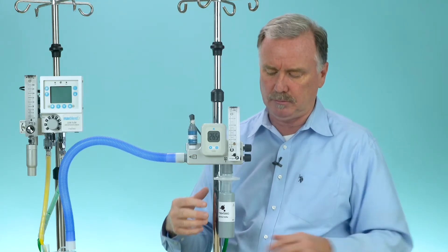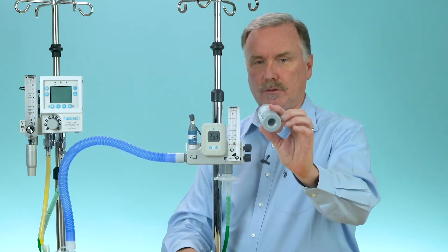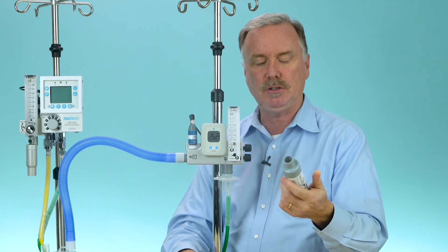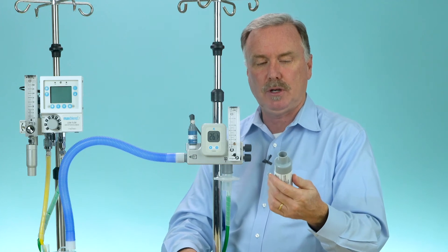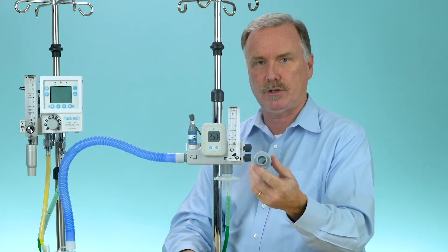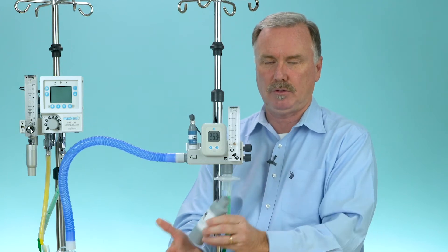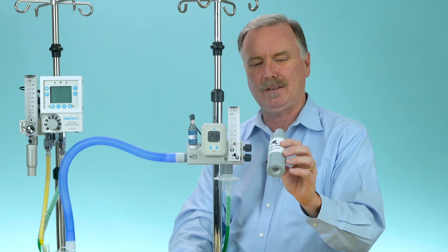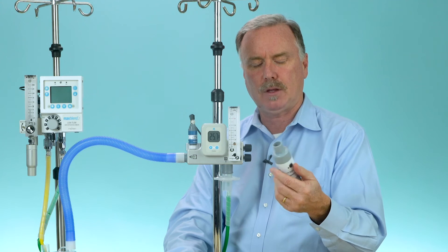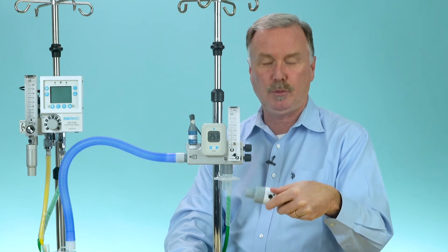Let's talk about this muffler briefly. One of these mufflers comes with every new unit. This is not a single patient use item, but it does have a life expectancy because you never want moisture to enter it — once again it's that resistance thing. So if this gets wet, you throw it away and buy a new one. The part number is R211-P38.